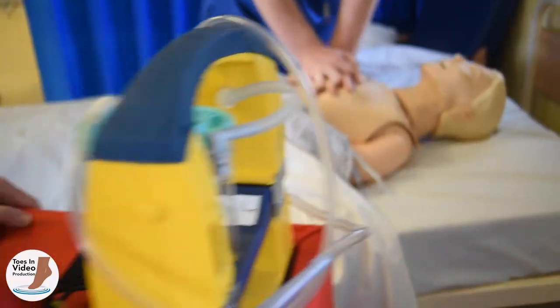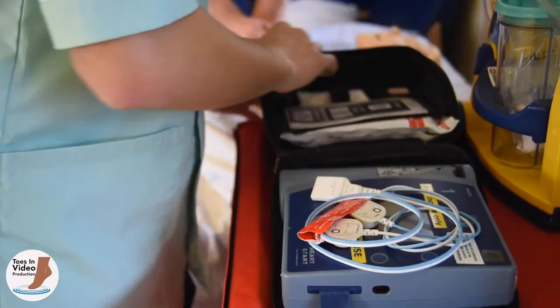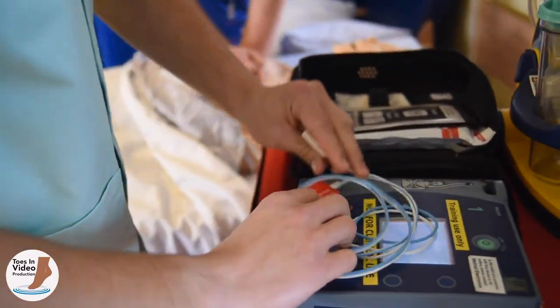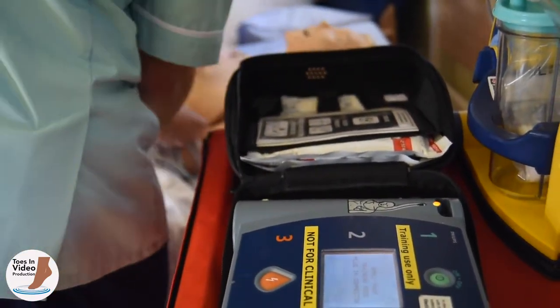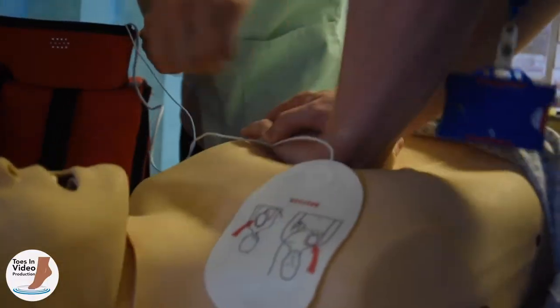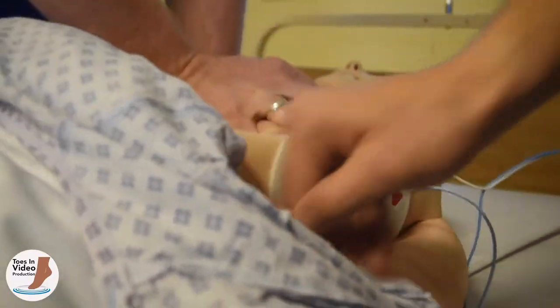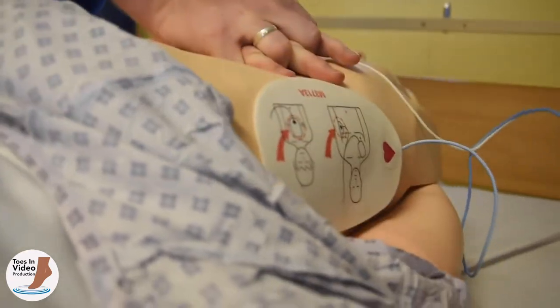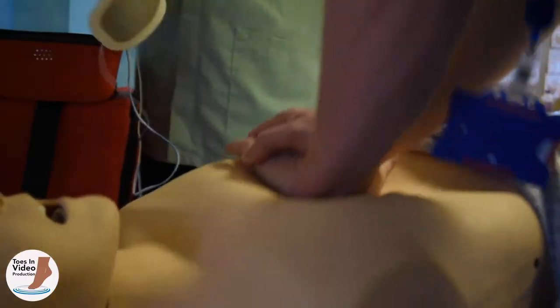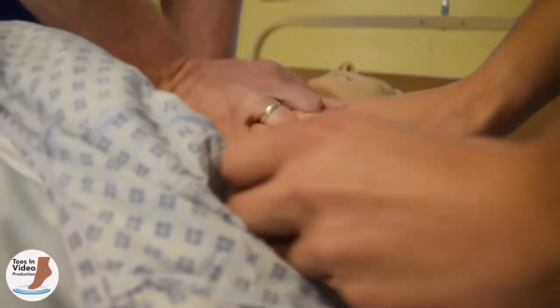When an AED arrives at the patient's side, switch on the device immediately and follow the prompts without interrupting CPR. Apply pads to the patient's bare chest — peel off one pad at a time and apply it according to the diagrams on the pads. One pad just below the right clavicle and the other pad on the left chest wall at approximately the level of the nipple in the mid-axillary line. If the person providing CPR is compressing the chest in the right place, there is no need to interrupt CPR to place the pads.